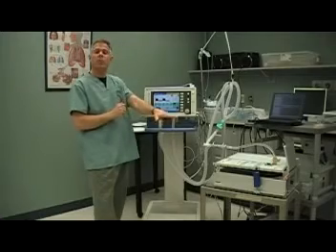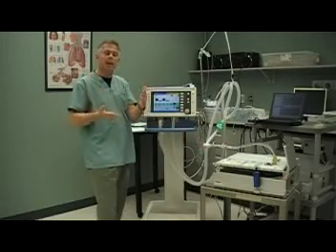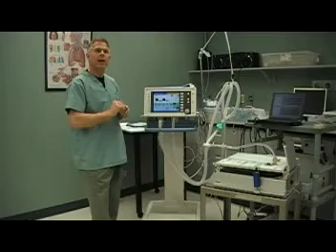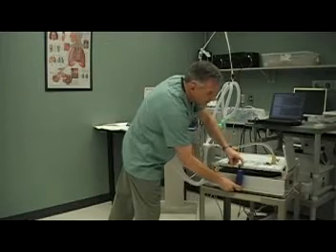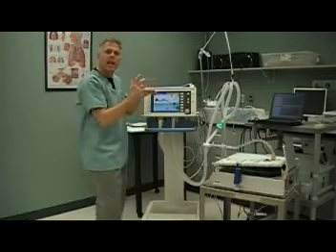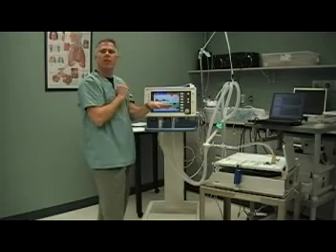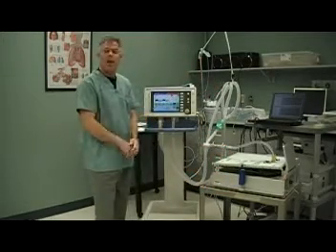In this particular mode, I'm being time-triggered because I set the rate at 12 breaths per minute and my patient's not breathing. So every five seconds the ventilator will deliver my pressure-controlled breath. Because it's pressure-controlled, it's pressure-limited and time-cycled to my baseline pressures. The adaptive element comes in as my patient's compliance changes. In this case, I'm going to have improved or increased compliance, so the ventilator will give slightly larger volumes than desired until it measures that change in compliance and then lower the pressure control limit to achieve my desired tidal volume. It's adaptive to changes in my patient's compliance and resistance, mostly compliance.